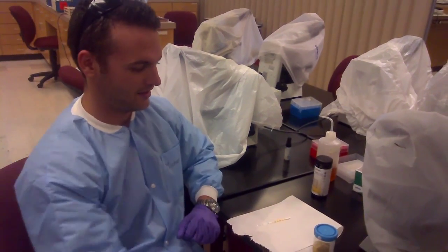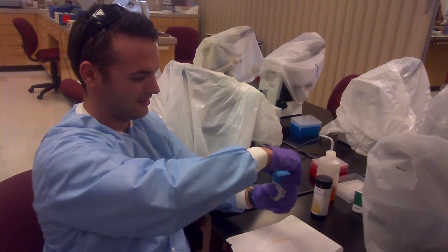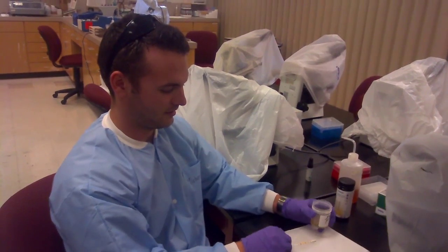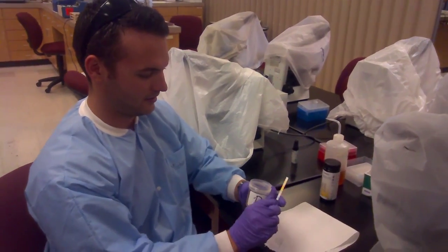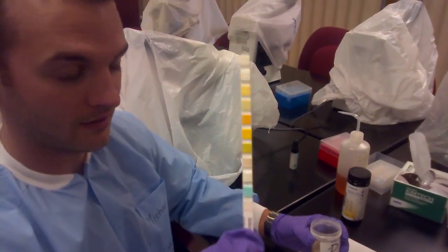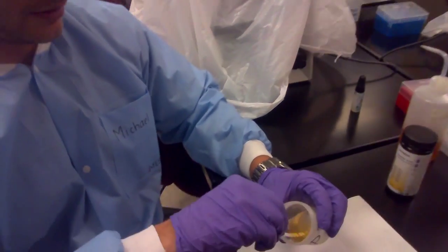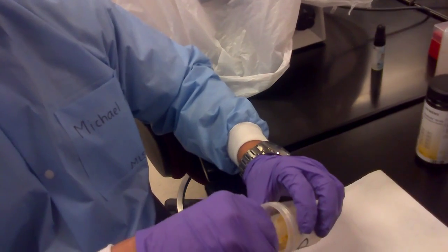Open up the urine. Dip the dipstick into the urine, making sure to get all the reagent pads in the urine.